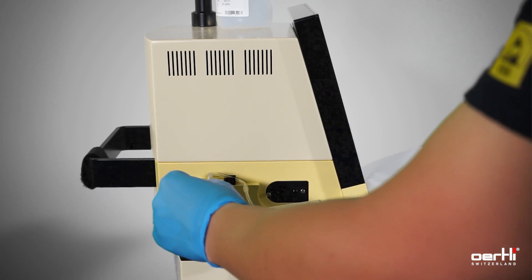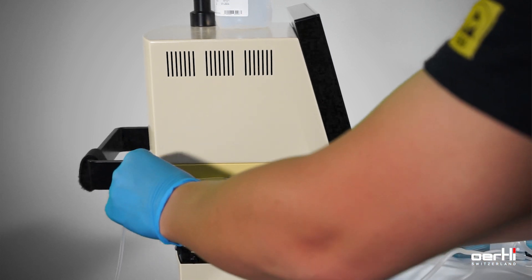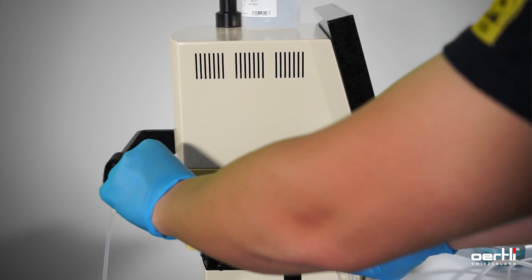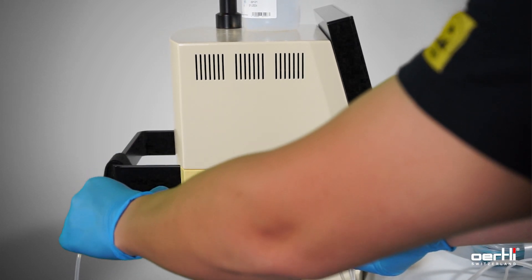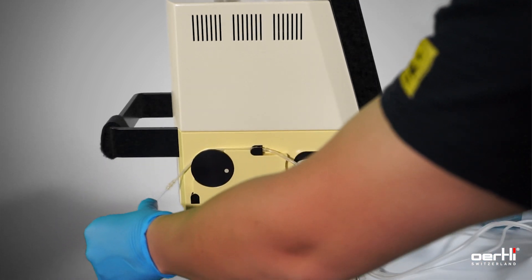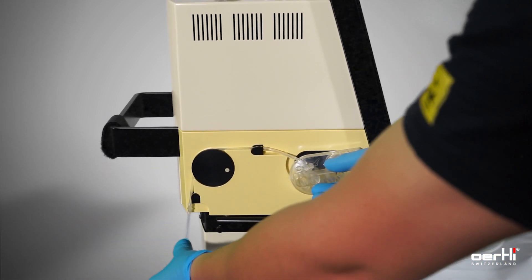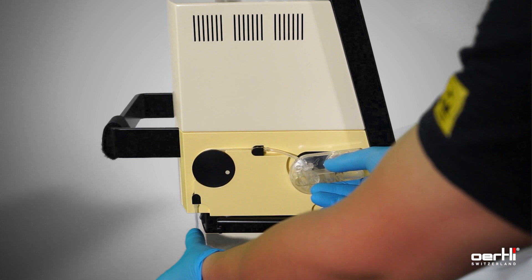Insert the U in the first black part here. Pull the tubing backwards and insert the tubing into the second black part here.